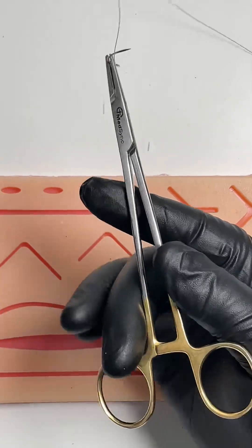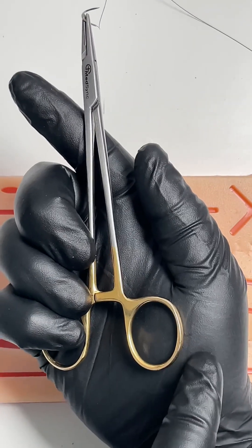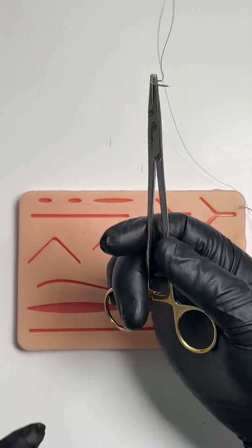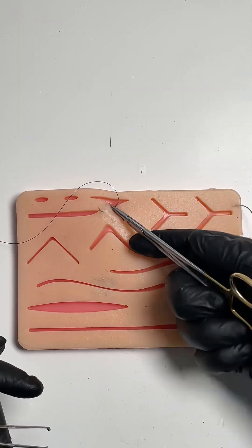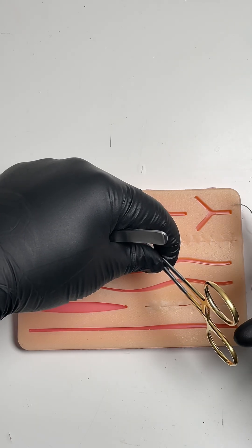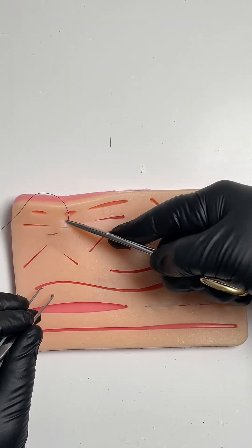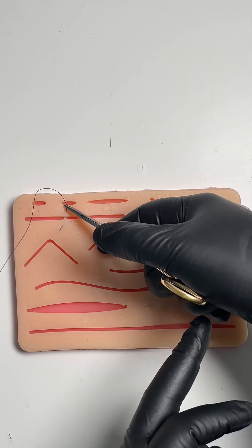Be flexible with your needle holder so when you palm you can unlock the ratchet by having three fingers go across one side and your thenar eminence — the bulk of muscle on your thumb side — push up, these fingers push down like so. The bit where people struggle is when they're going from the palm grip and then they want to unlock the ratchet in their hand. Just go across and then those fingers stay down, this part pushes up, and you unlock the ratchet like that.